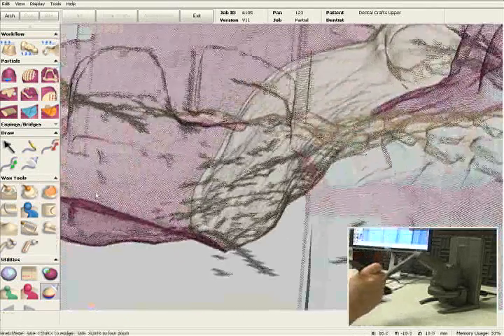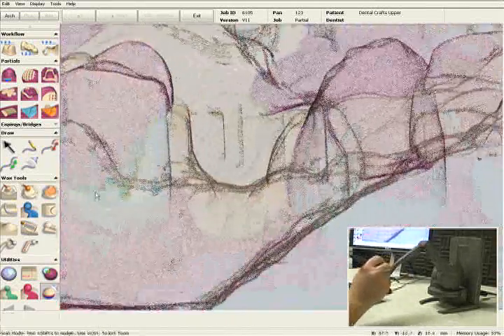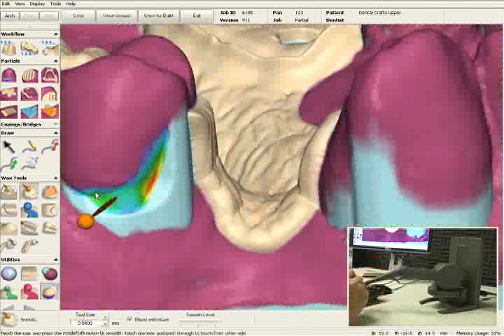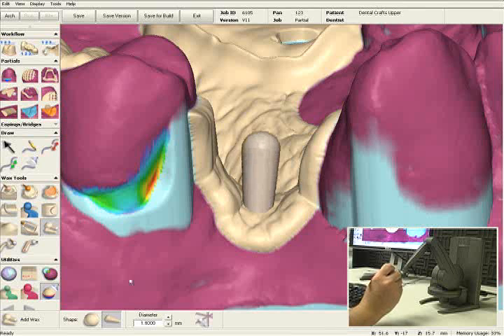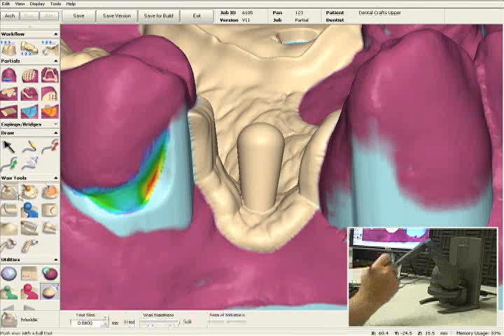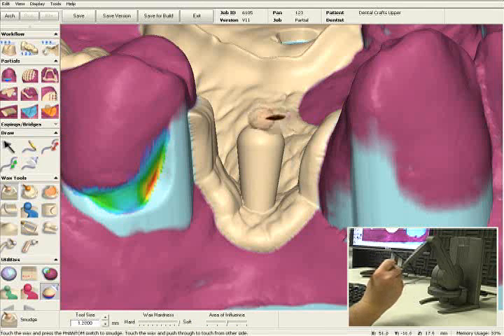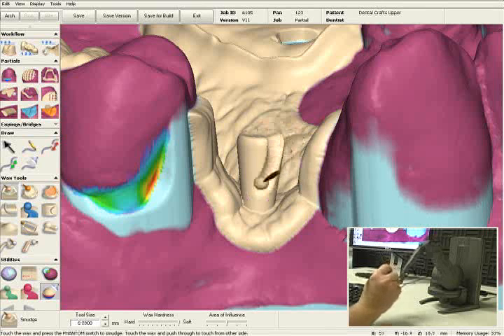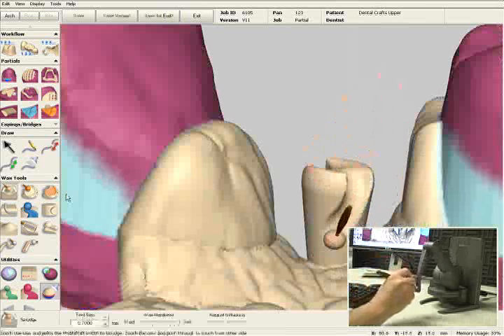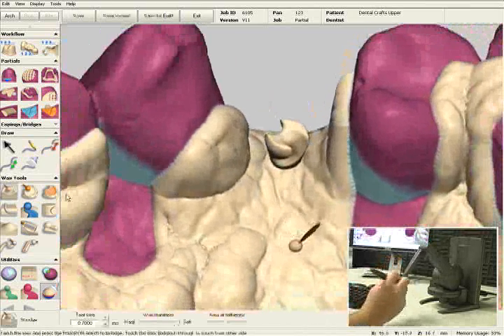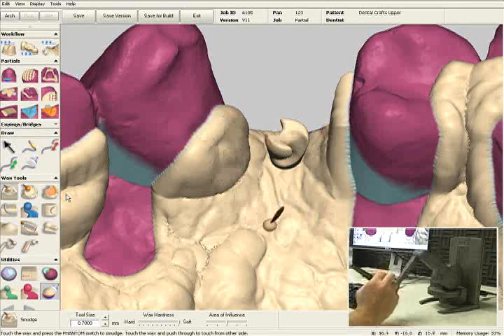Now let's add a post. I'm going to zoom in to the area and select the tool called Add Wax Tool. I'll place this tool right in the area where I want to start the post, extend the post up, and maybe make the occlusal surface a little bit wider. I'm going to select a carving tool called the Smudge Tool and give the post's occlusal surface a little bit of a nail head shape. If you want to add a little bit of retention, you can go ahead and grind some of the wax away — so now we'll have a little bit of retention on the post. Do the same thing on the lingual side. You can also add a pontic in this area if you wanted to — it's completely in your control what kind of design you want for this particular partial.